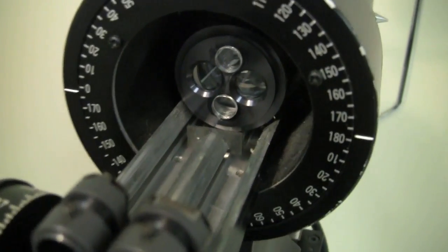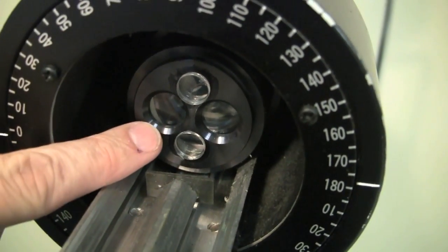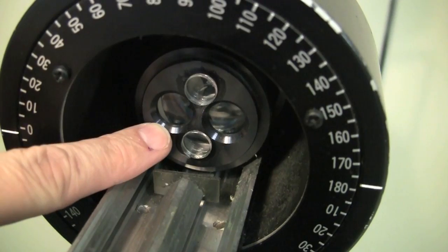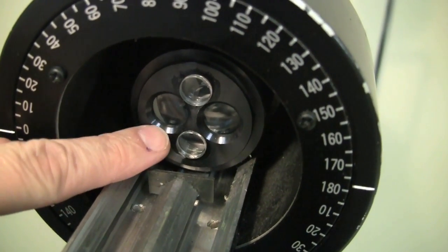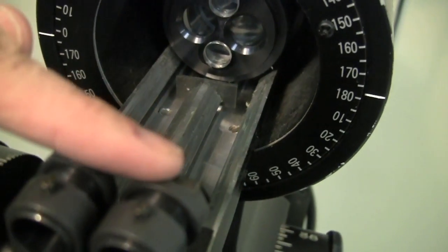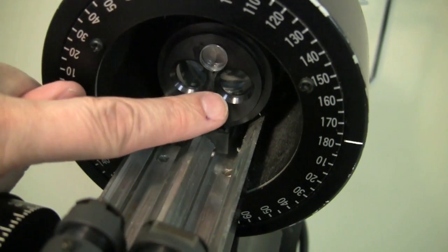If we go back to this view and look a little further inside the instrument, what you can see is this little splitting mechanism, which has basically split the light going through towards you away from the patient into two beams, one that is used for the horizontal prism and one that is used for the vertical prism. So this one helps us measure the horizontal meridian of the cornea, and this one helps us measure the vertical.